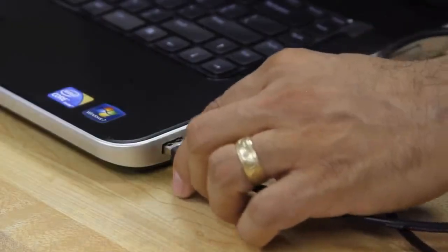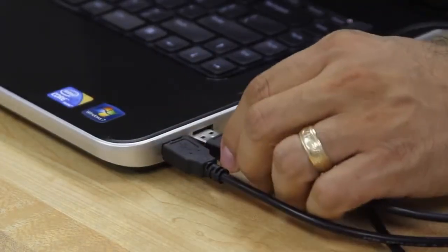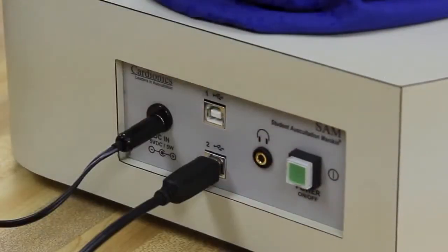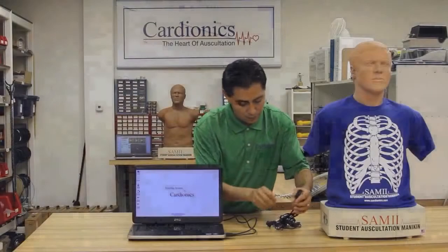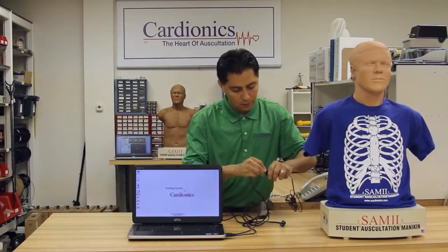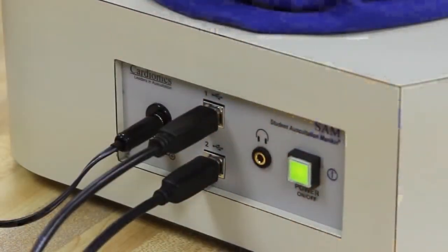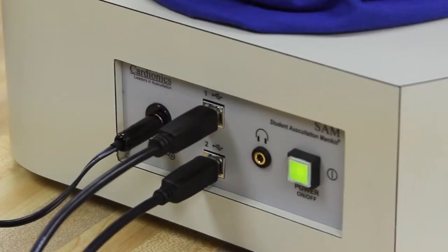To continue setup, connect the two USB cables to the Dell laptop, then to the ports in the base of the SAM2 mannequin. Connect the mannequin's power cable, press the power button on the mannequin, and confirm the green light comes on.